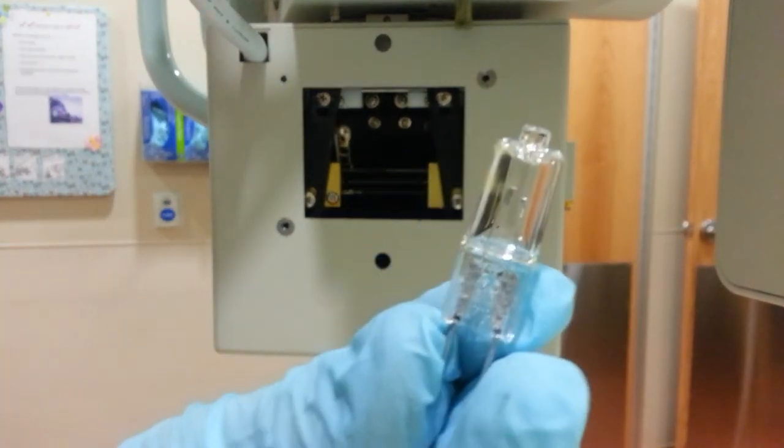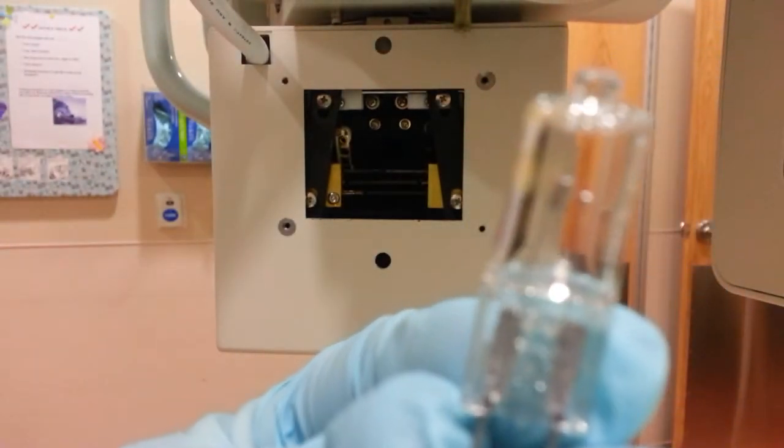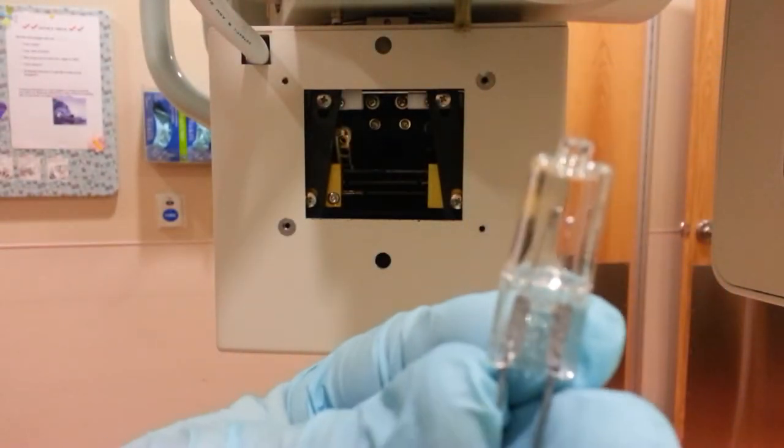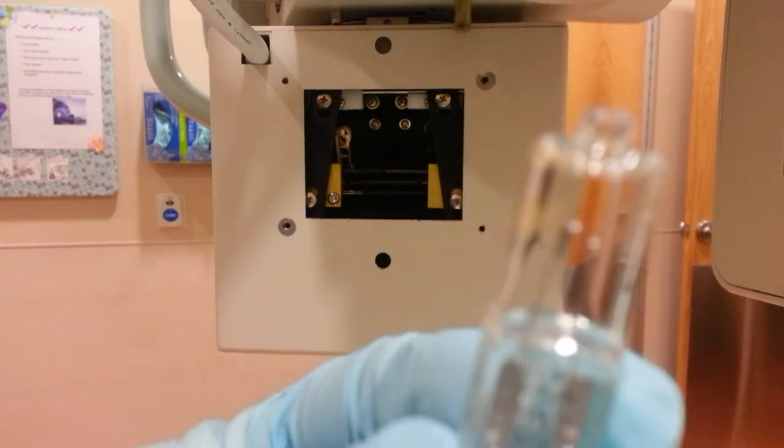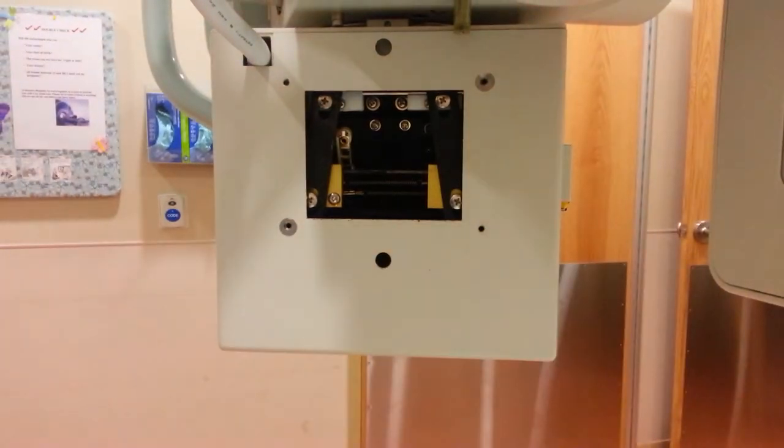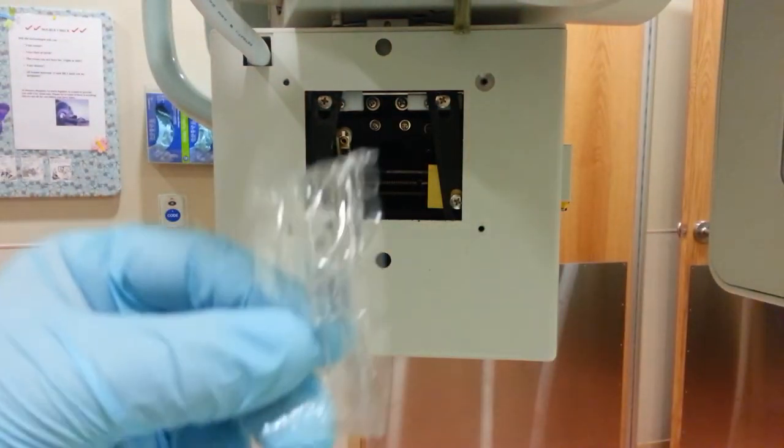See the burned out filament in there. Maybe it's not in focus, but it's burned out. Here's our new one.